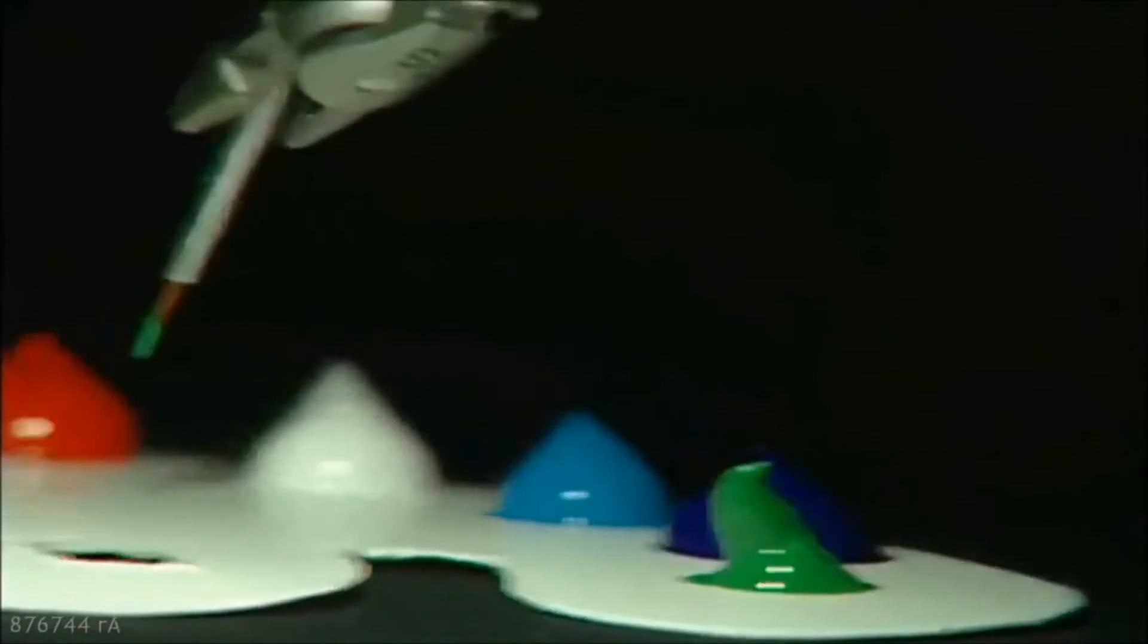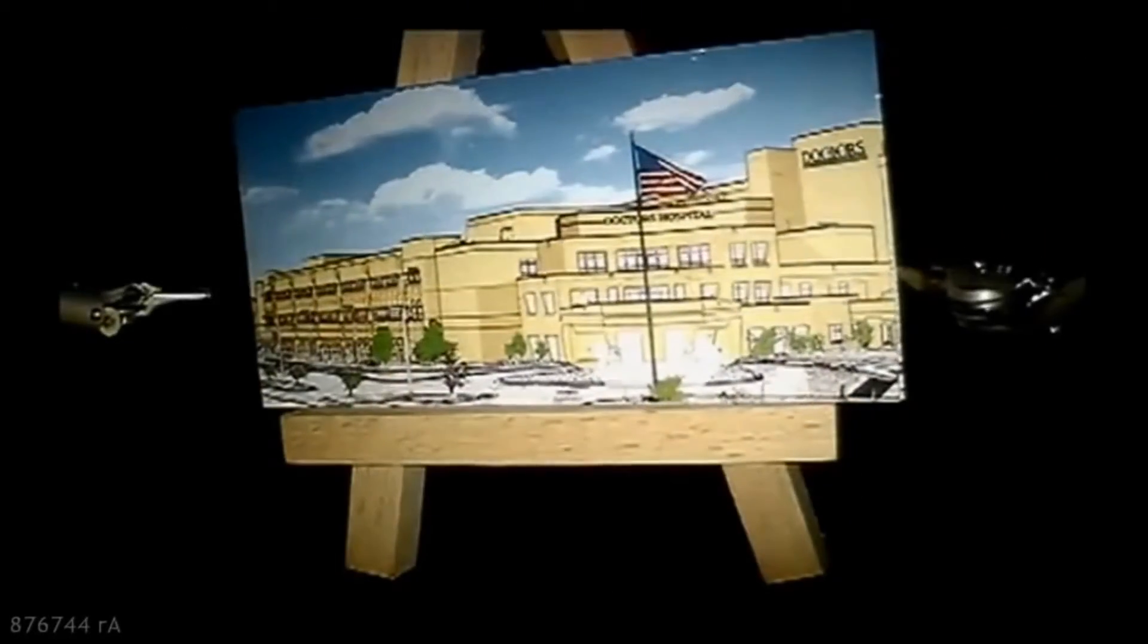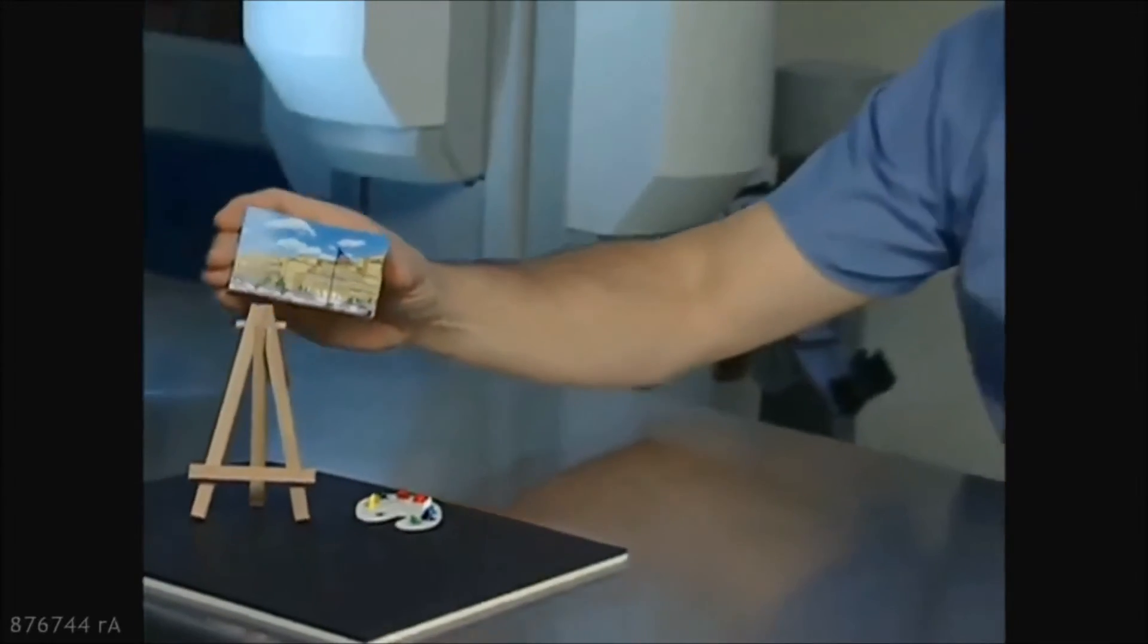Da Vinci also studied anatomy, but even he would be amazed at what these instruments can do inside the body through tiny incisions just a few millimeters long. These procedures are very precise, each one like a Da Vinci work of art, and that means my patients have smaller scars, less pain, and a much faster recovery.